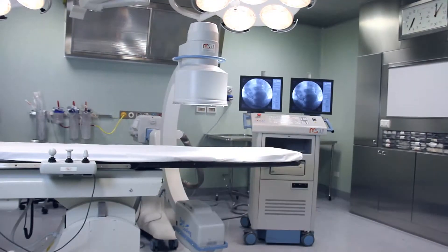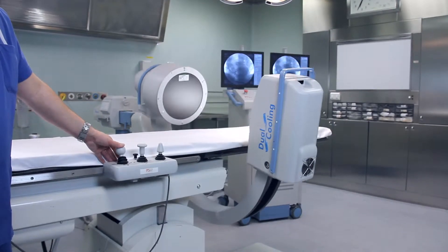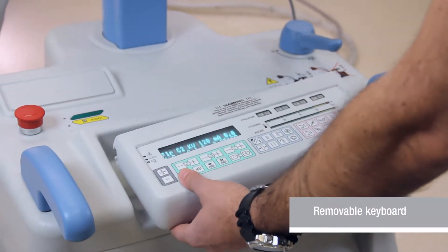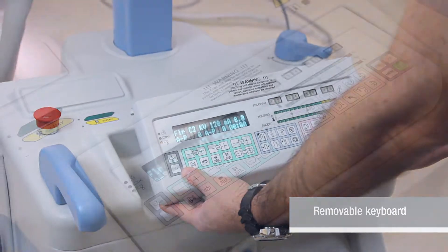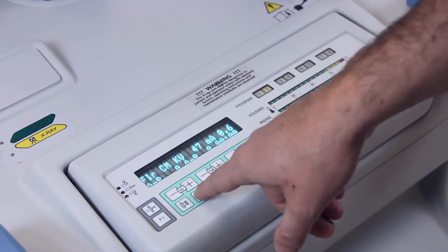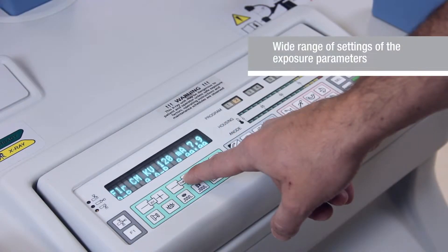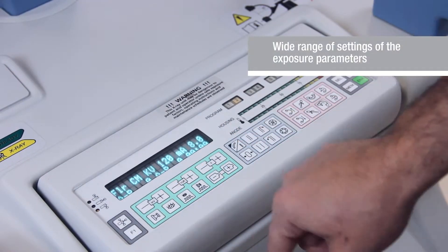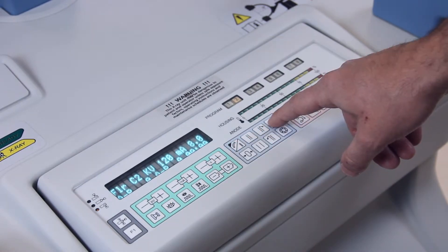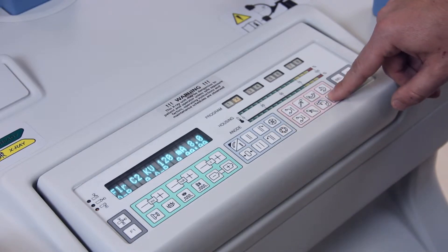Multifunctional angiographic unit ARIS MR Angio with an angiographic table is irreplaceable for radiologic surgery. All movements are motorized. The unique feature of ARIS MR Angio is a removable control panel with the help of which one can adjust voltage and current settings, control the video system and stand movements. All C-arm movements can be programmed.